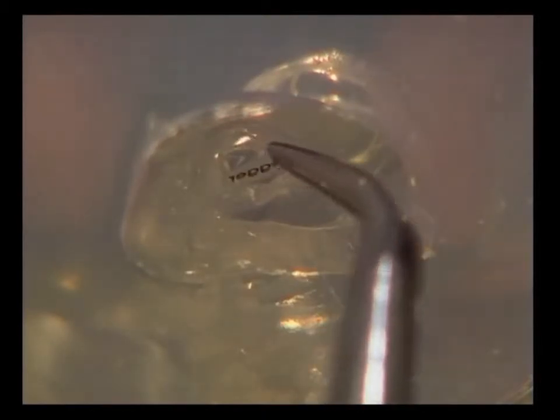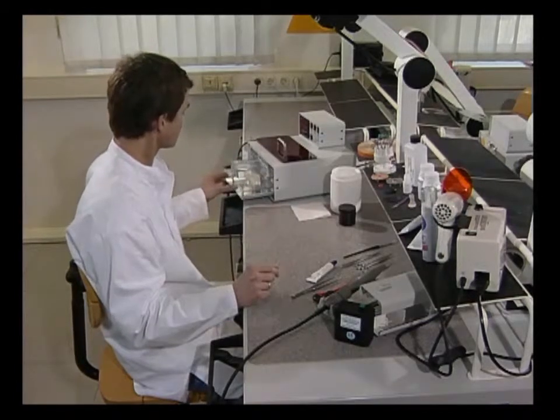The label is placed with tweezers in the modeling paste so that the lettering is clearly legible. After that, it is briefly polymerized in the light curing unit.